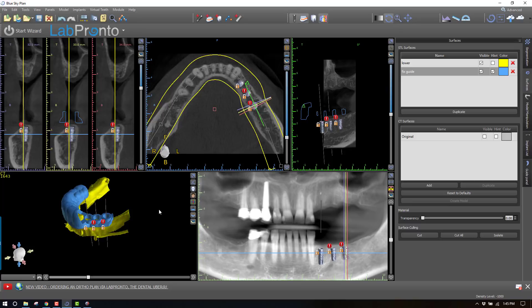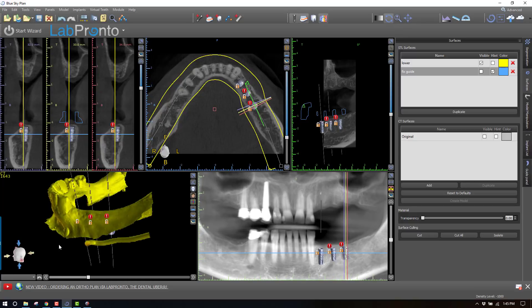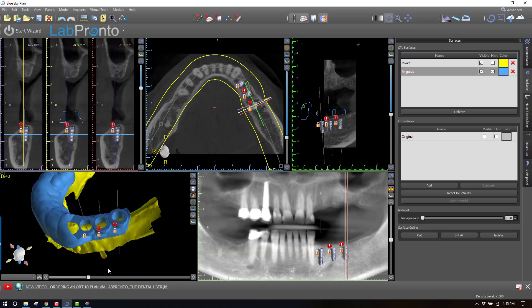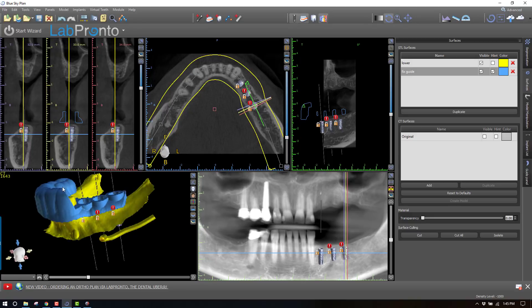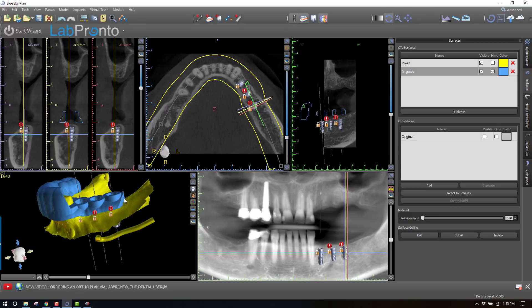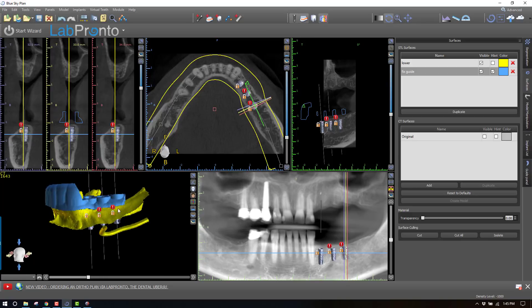There are a variety of circumstances where you might need to do this, but the most notable is when you have a guide that's going to be a distal extension supported by just tissue. We're placing three implants in the posterior mandible, and we've already designed the surgical guide for the fully guided keyless kit from Blue Sky Bio. As you can see, this is tooth supported in the anterior, but it's only soft tissue supported in the posterior. As you're doing surgery, it's going to be very prone to having a little bit of squish — the guide can seat and deviate down into the tissue, causing your surgery to not be as accurate.